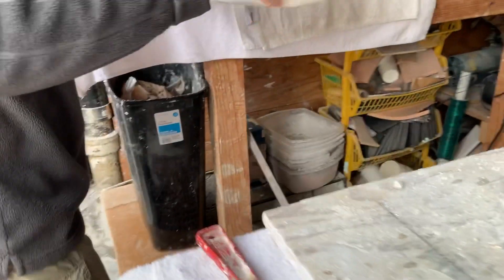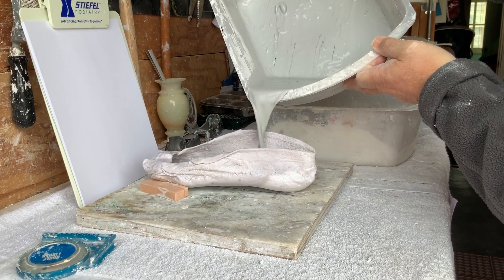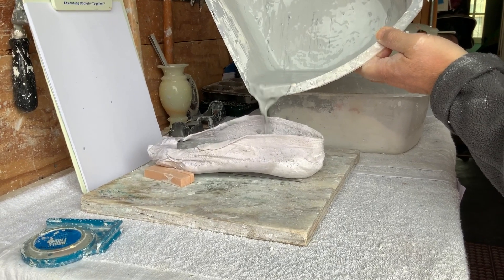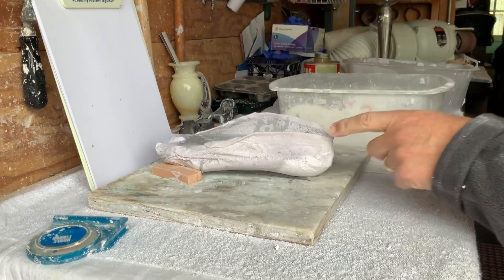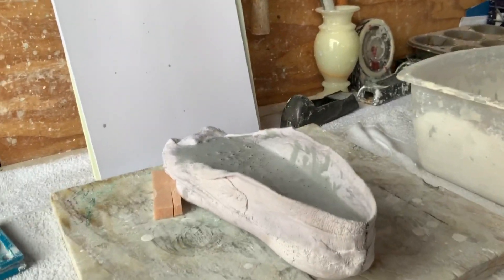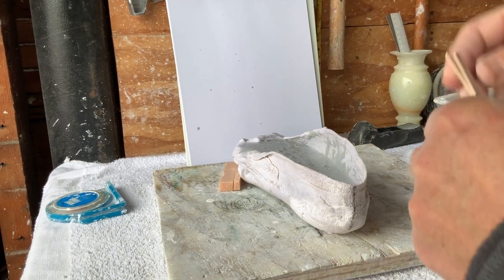We're now going to take that and pour it into the negative cast so that it comes just to the top layer. This is one of the reasons we want a deep negative cast — we want it as deep as we can, with the edges up by the malleoli. That deep thickness makes it harder for it to break under the vacuum press.